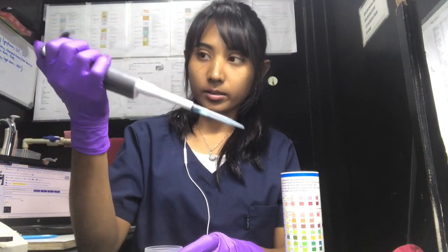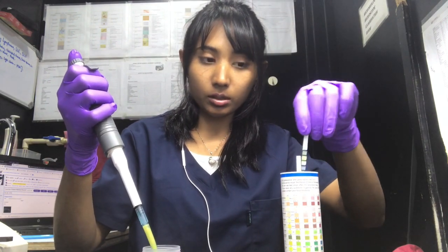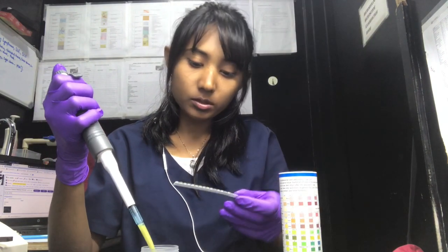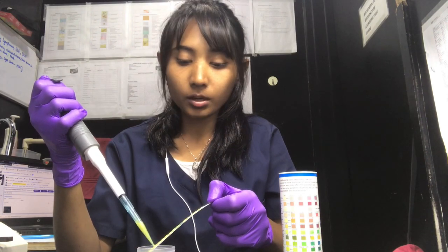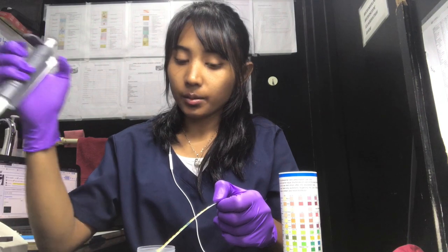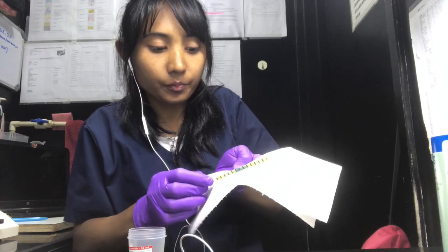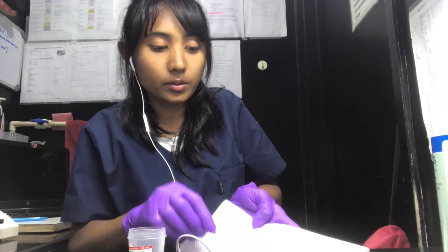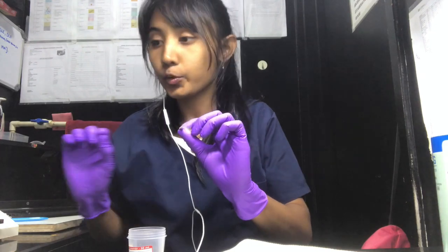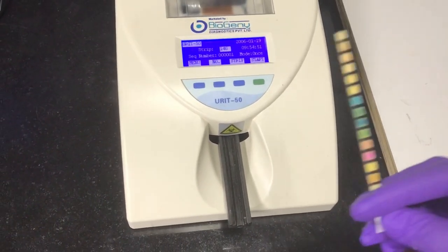I'm going to open the sample and with a 1 mL pipette I'm going to pipe out the urine. Usually you need to dip the urine strip inside the urine, but this urine being very abnormal, I'm just doing it like that. Now I'm going to gently take all the extra urine from the strip and put it in the urine analysis machine. I'm going to insert this strip in here.